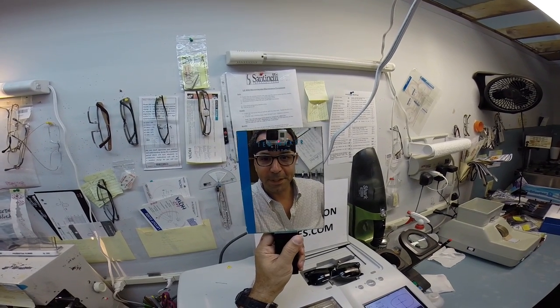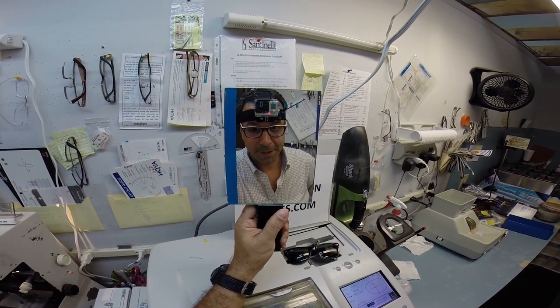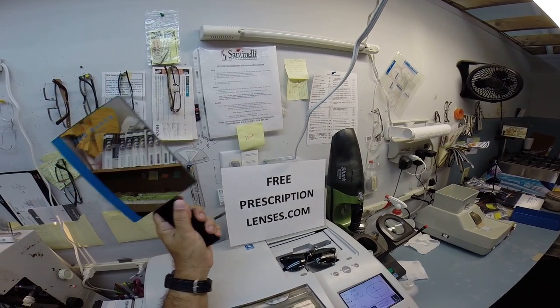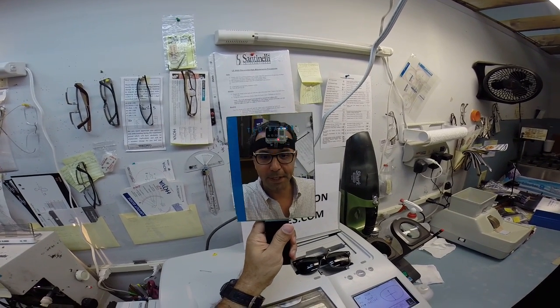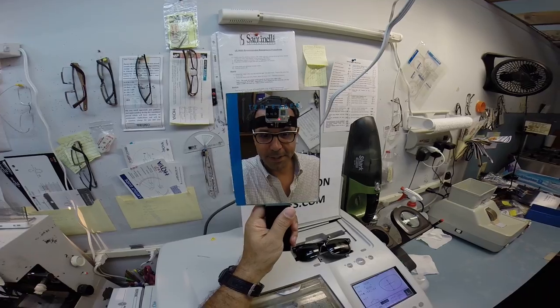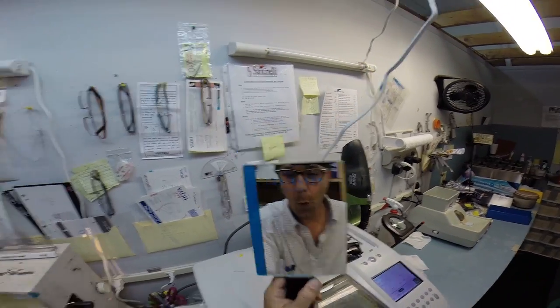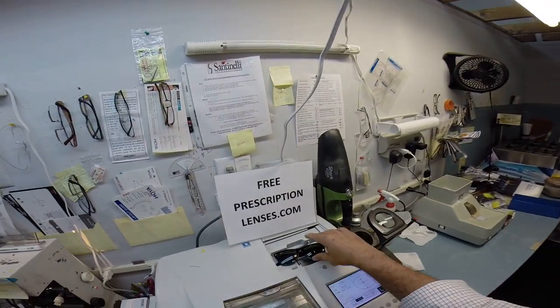Dave in Massachusetts, when you're not in Florida that is, Matthew here with freeprescriptionlenses.com and I'm going to cut a gradient tinted bifocal lens for your Ray-Ban frame that you sent me.